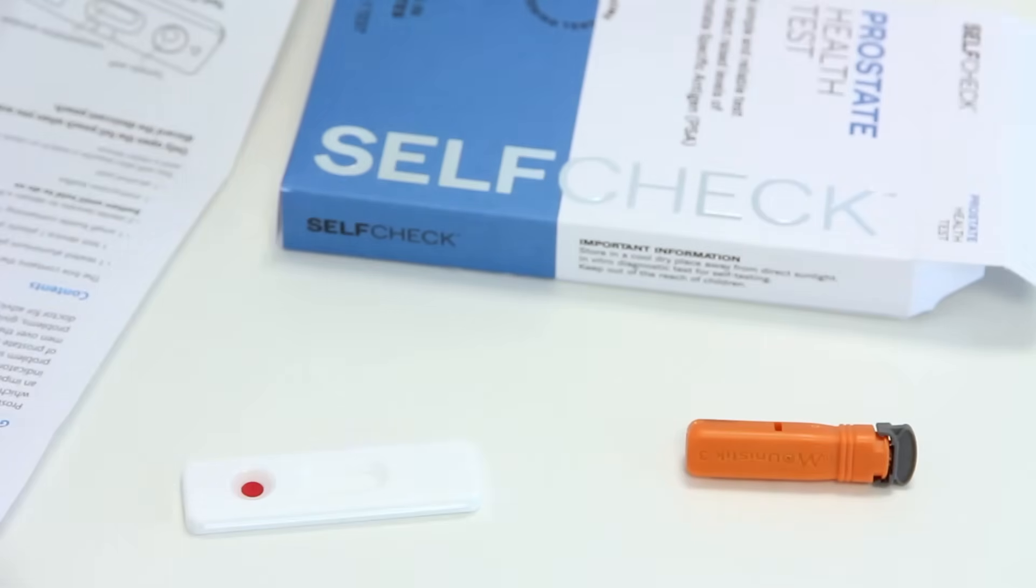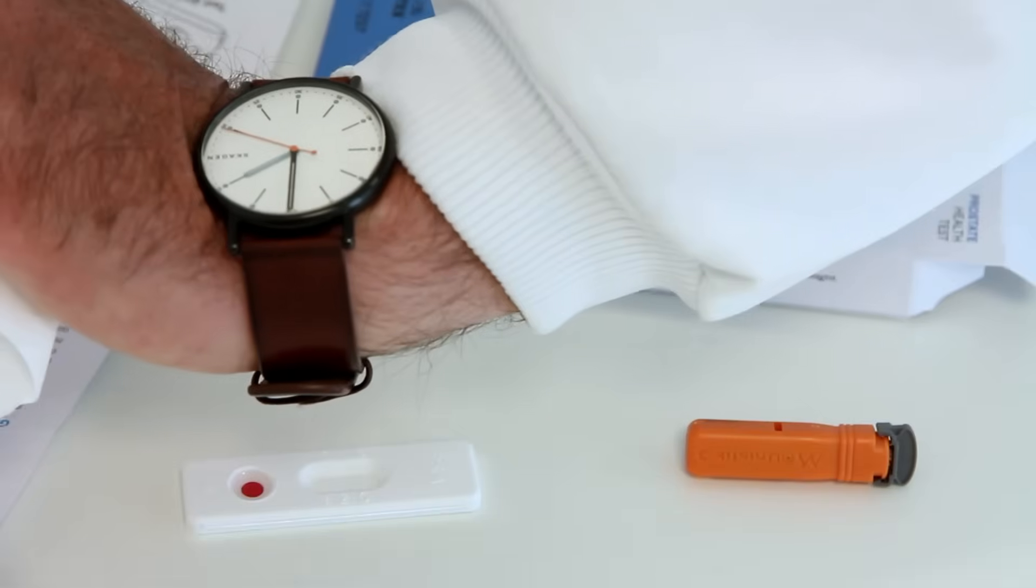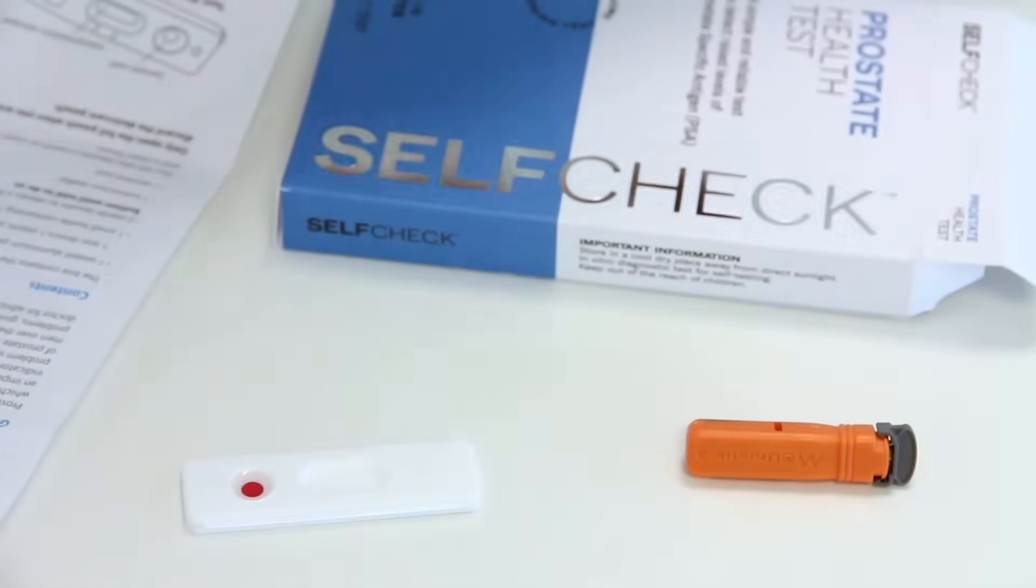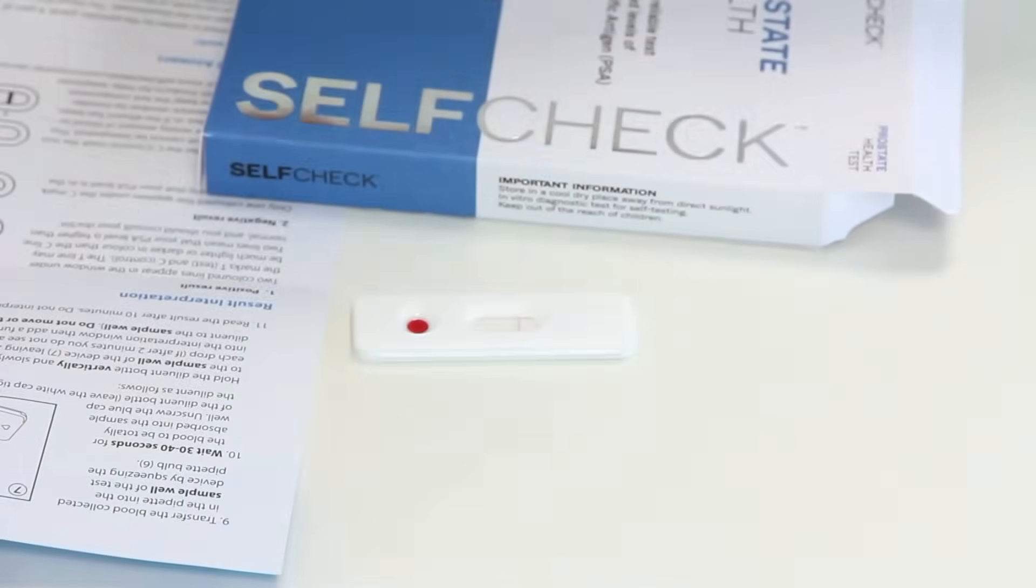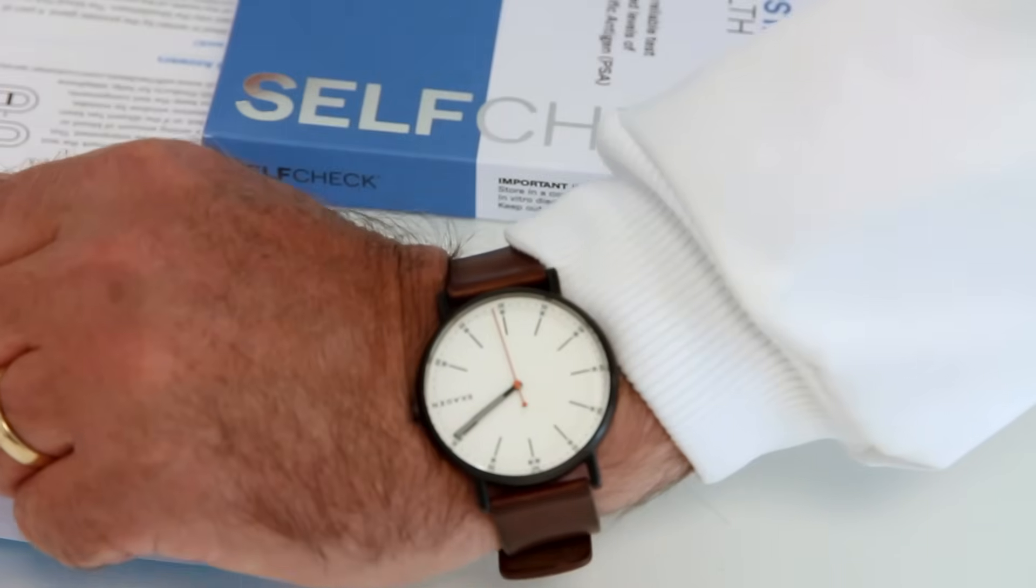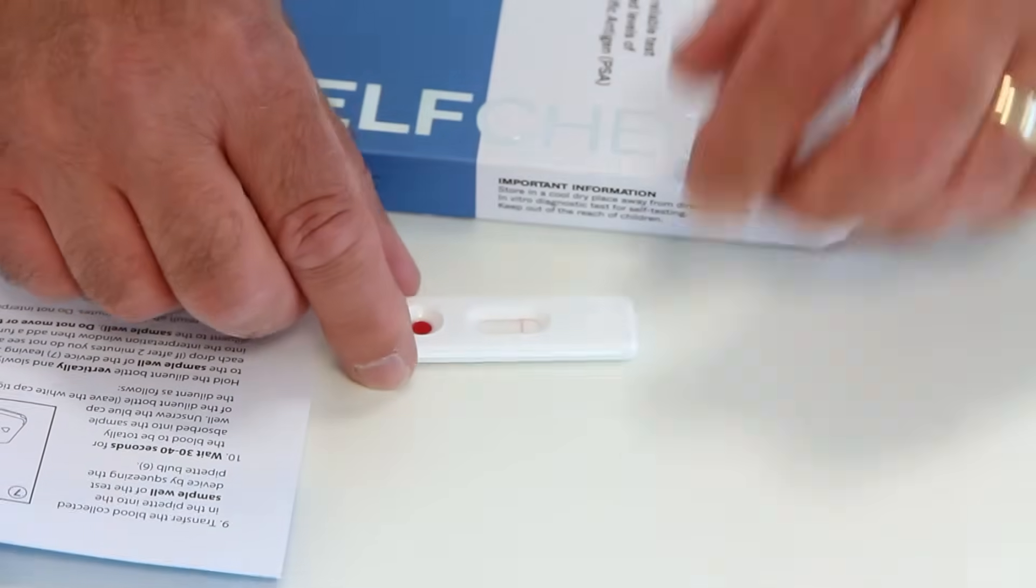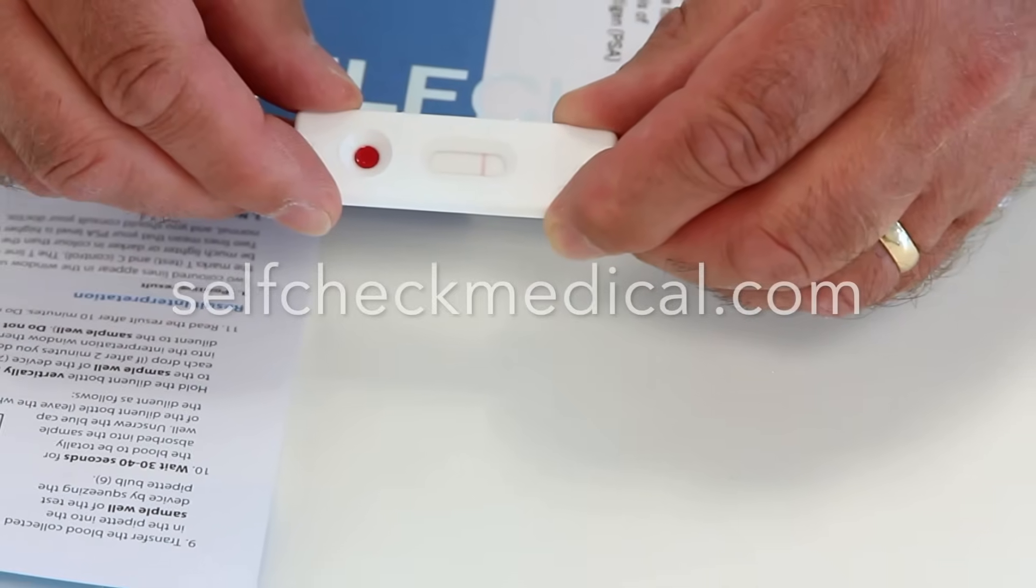Use a watch or timer now to know when to read your results, as indicated in the instructions. Most self-check tests work in this way, but always follow the instructions provided with your test.